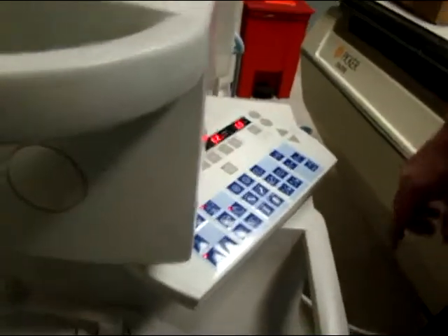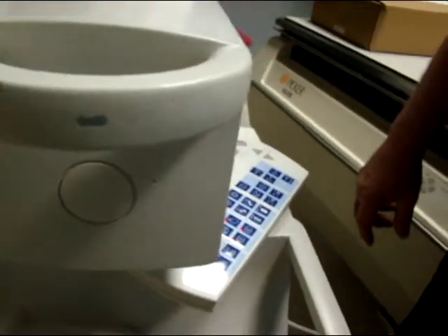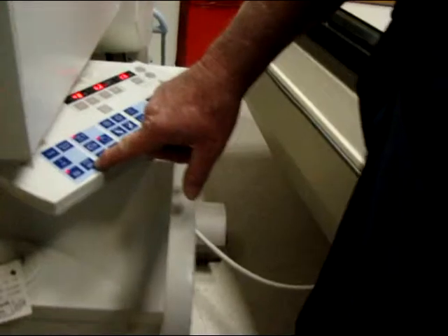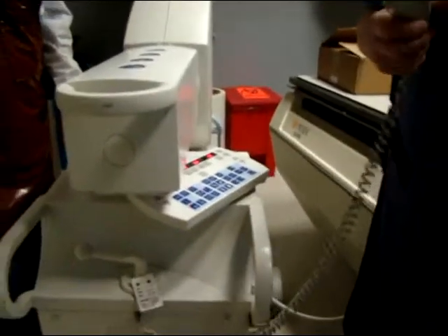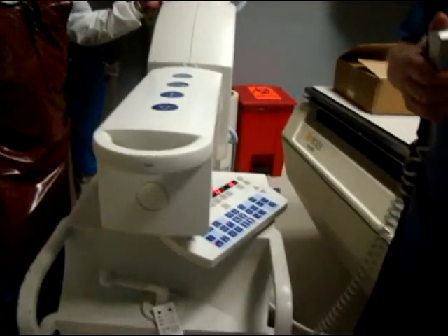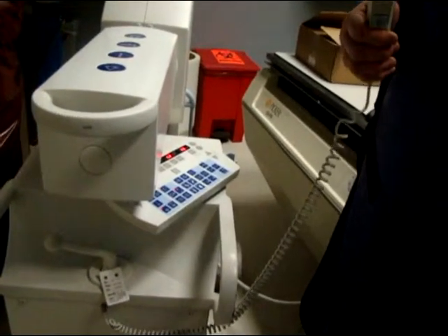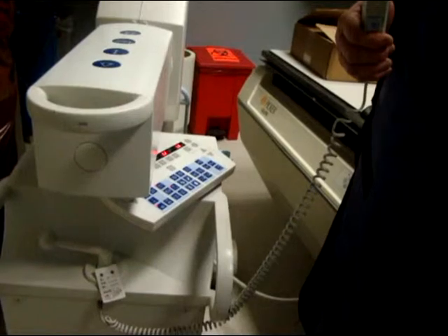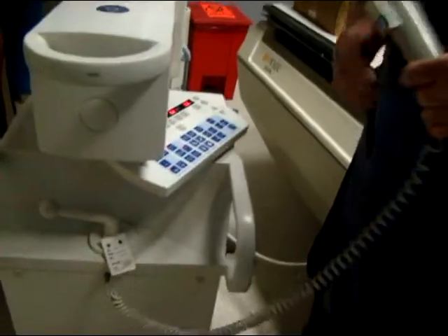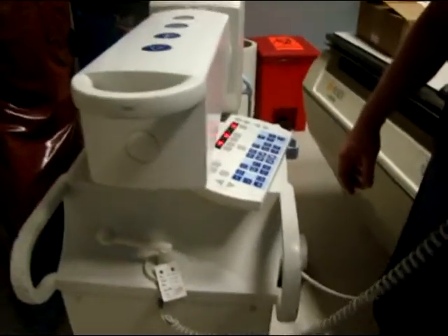How do you do the reverse? Just hit reverse — you don't have to take an x-ray first; it's already there. And this is your pulse fluoroscopy. A pulse is not continuous — you push the button down, get an image, then a break, image, break, image. With the DR, you get one single shot. The single shot is digital radiography, and you have five settings on that.